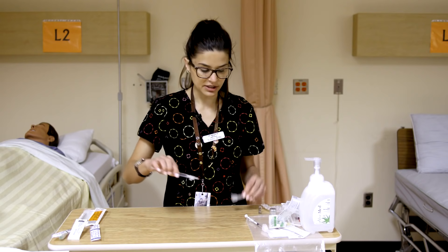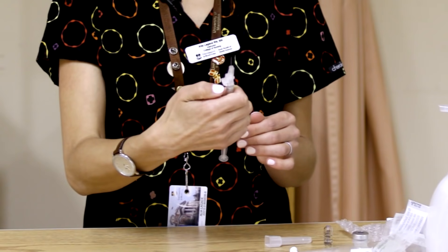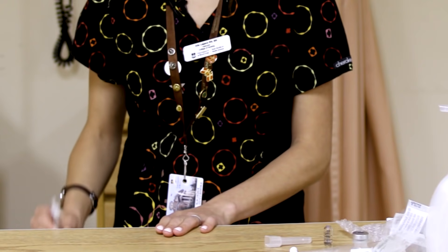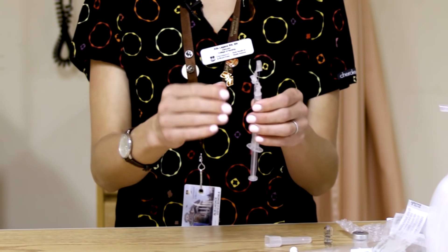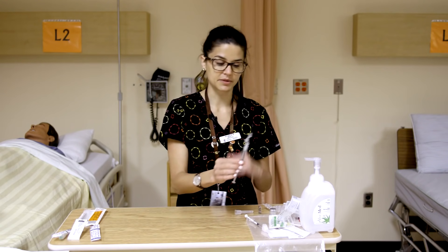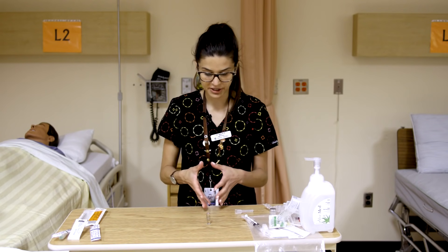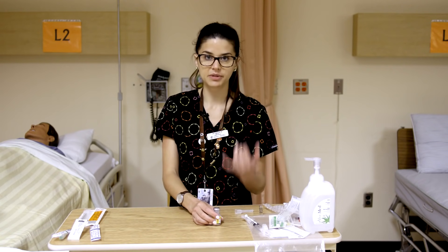I'll show you the safety mechanism on injection needles that are not pre-attached. Once all medication has been injected, you can push up with your thumb or press it down on a flat firm surface to activate the safety-engineered system — it covers the needle tip so it can't poke you. This would still go in the sharps container. An ampule is always single-use — the remainder goes into the sharps container — whereas vials can actually be multi-use.